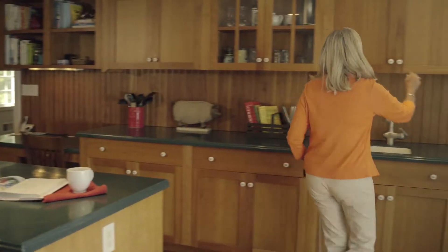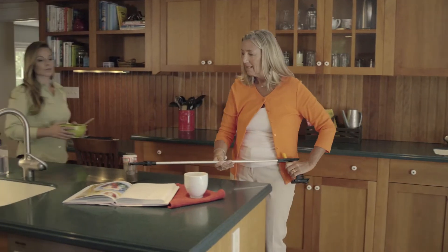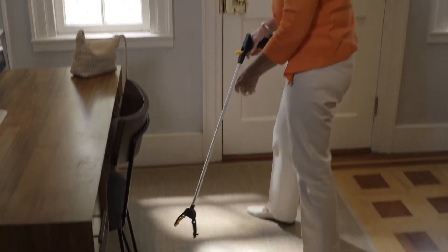So the drive reacher is really a big help. The reacher is strong — the cable inside is made of steel, which enables Mom to reach for things that are typically too heavy for her. Even with my arthritis, I'm able to work this. All it takes is a little push and it opens.